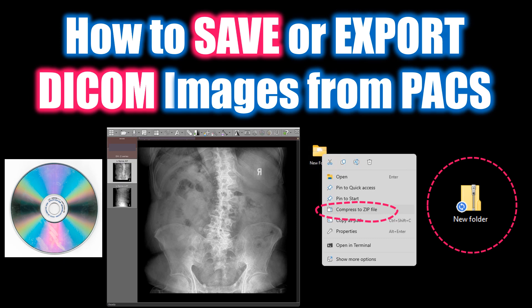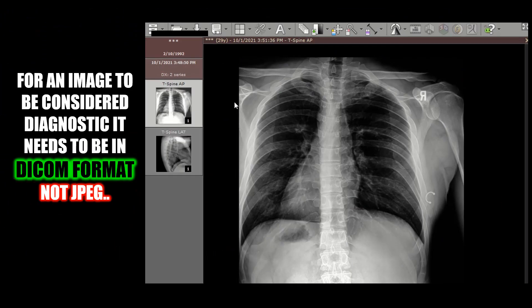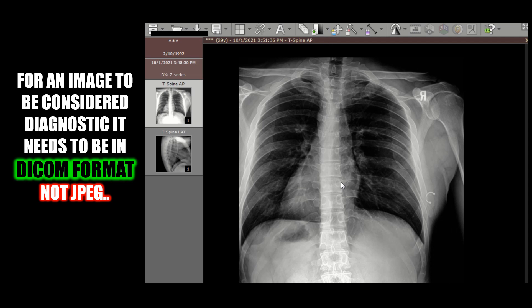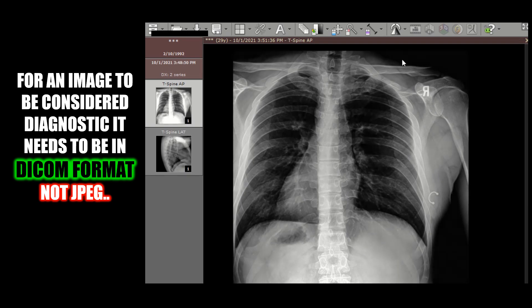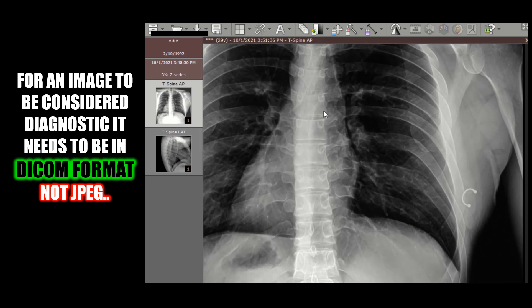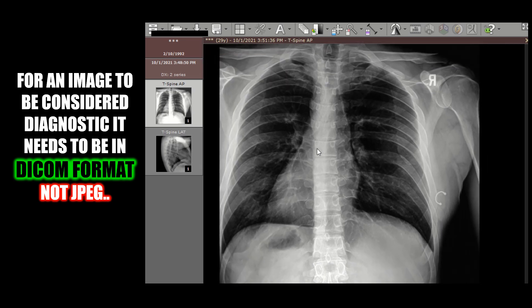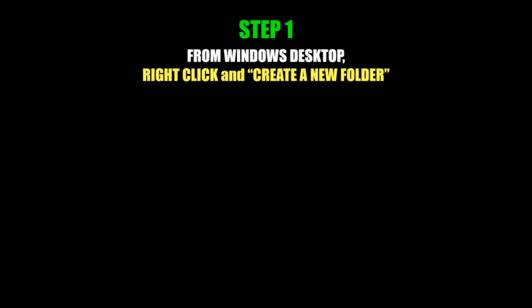Welcome to X-ray Review. This will be a quick video about how to save and export DICOM images. For an image to be considered diagnostic, it needs to be in DICOM format rather than JPEG. In DICOM format, the image can be manipulated — you can zoom in, zoom out, adjust window level and contrast, and change a number of features to best visualize what you're trying to see. This cannot be performed with a JPEG, and that's why images need to be saved in DICOM format.